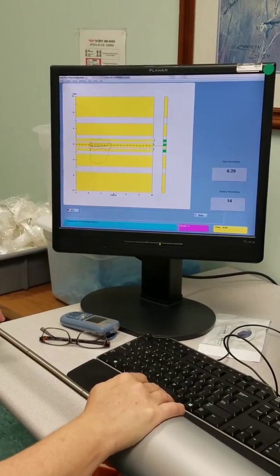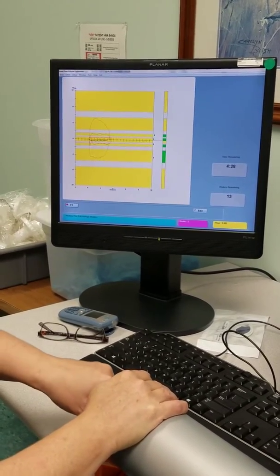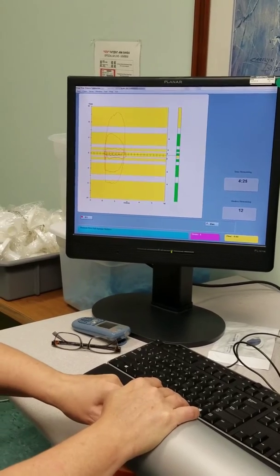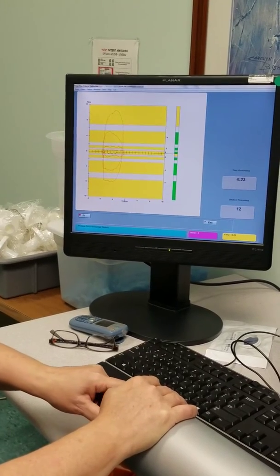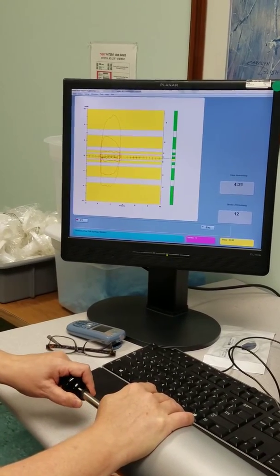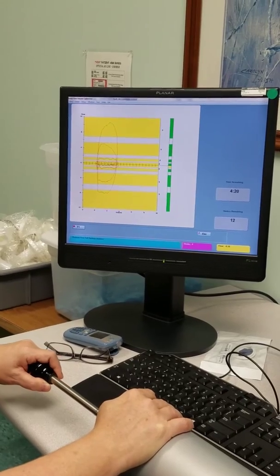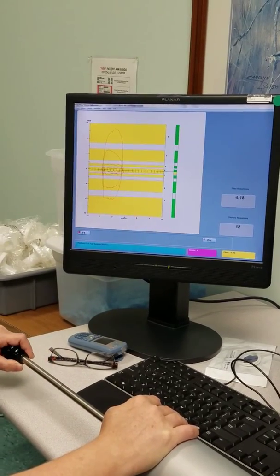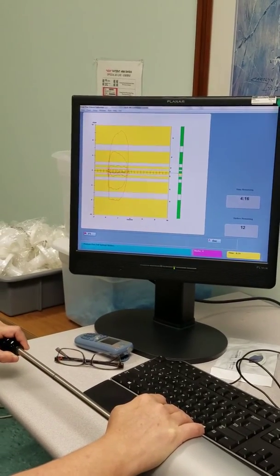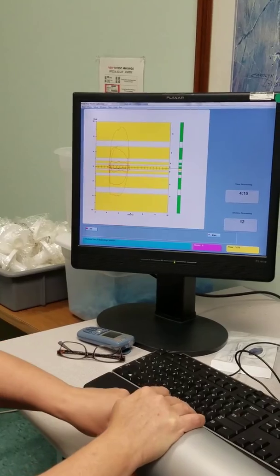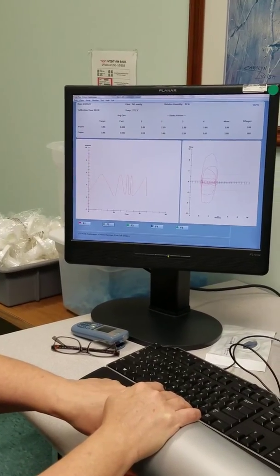Then we'll get our gradually accelerating flow rate. Now see the last thing's got these last two. The top and the first middle one there. And you think after this you're done. But you're not. It's got a second screen.